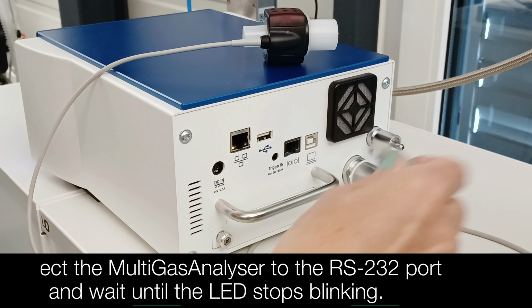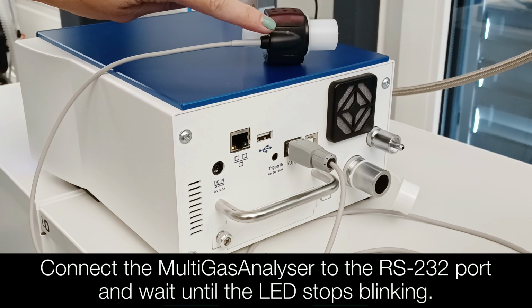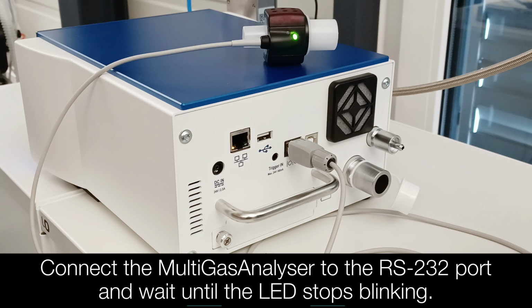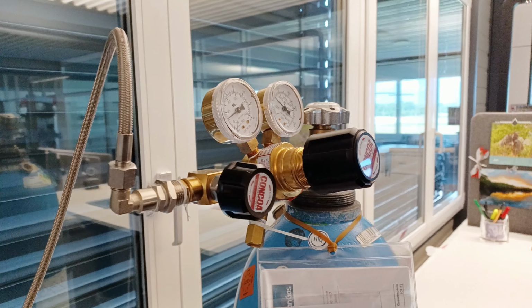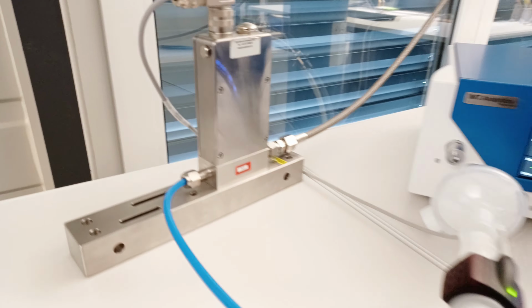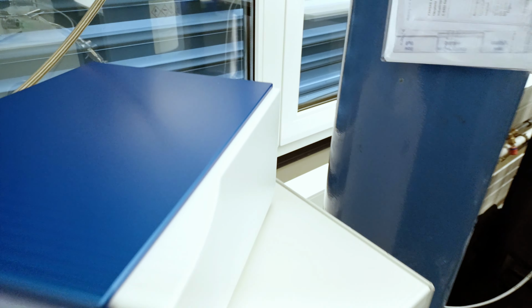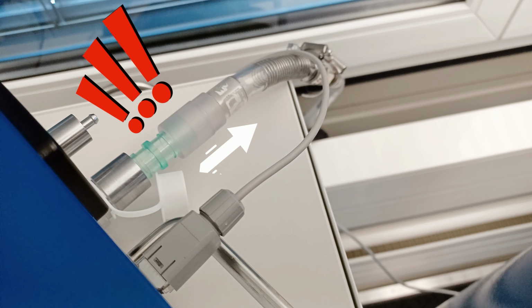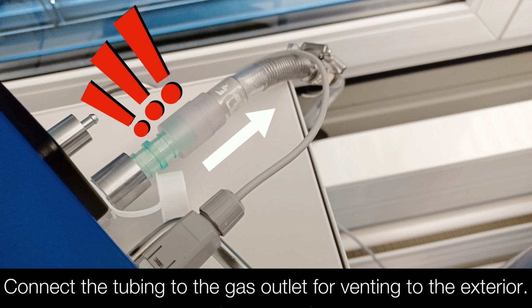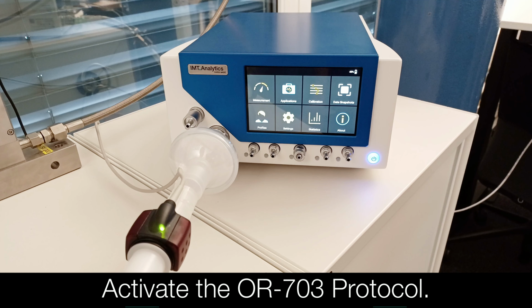Connect the MultiGasAnalyser to the RS232 port and wait until the LED stops blinking. Connect the tubing to the gas outlet for venting to the exterior. Activate the OR703 protocol.